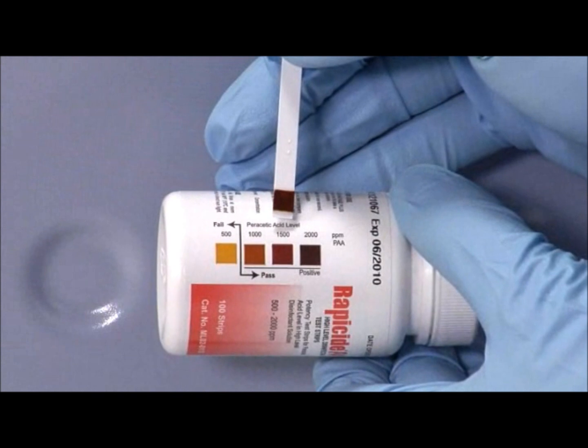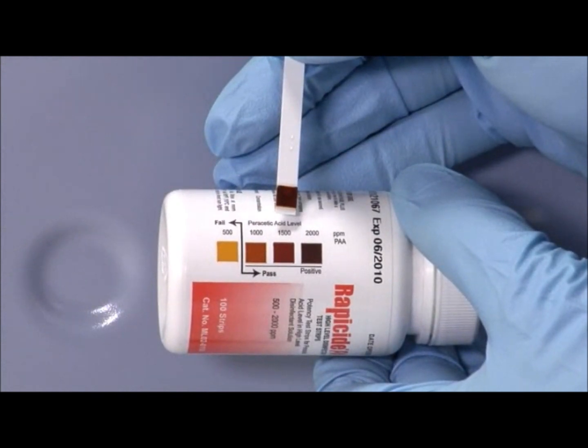Wait 30 seconds for a reading and compare to the chart on the Rapicide PA test strip bottle. If disinfectant is above the 1,000 parts per million, the minimum effective concentration, or MEC, has passed.